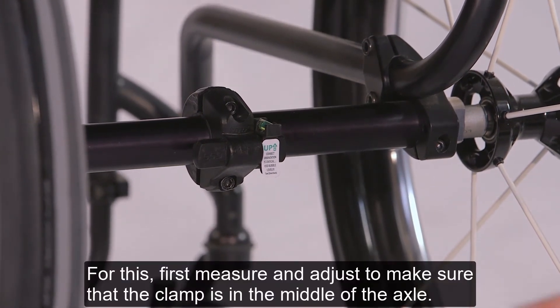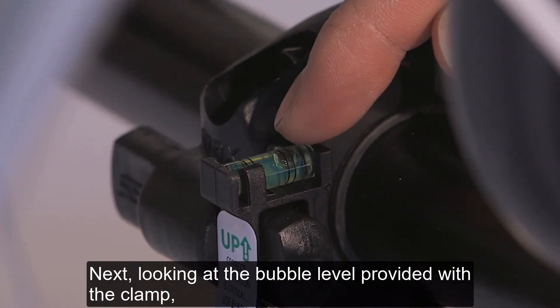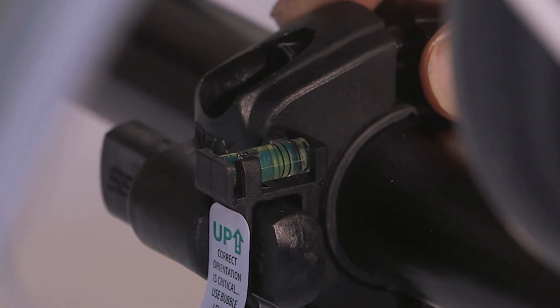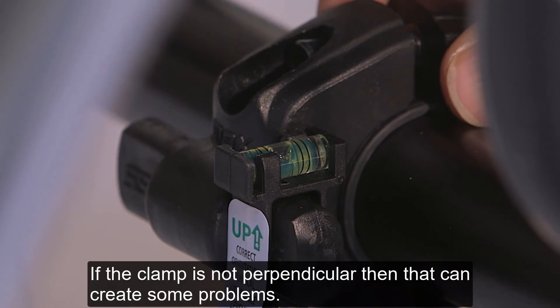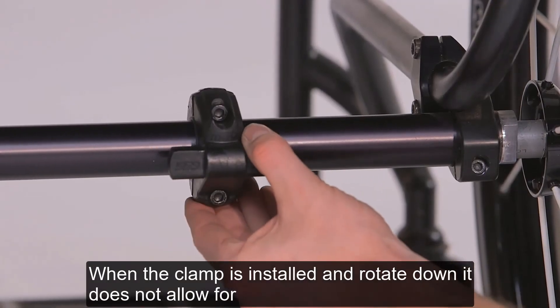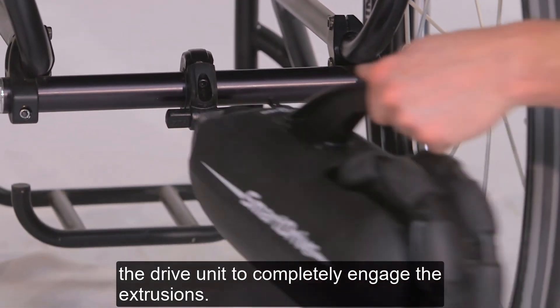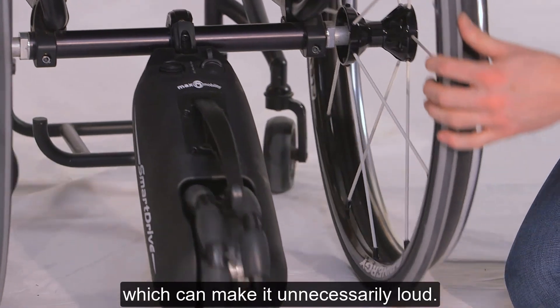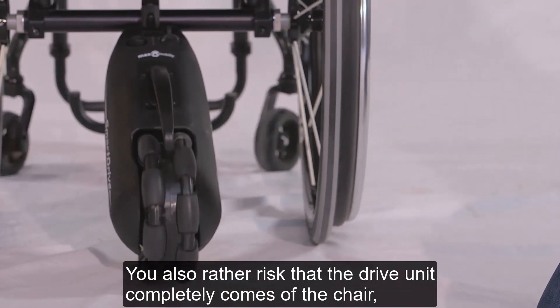First, measure and adjust to make sure the clamp is in the middle of the axle. Next, looking at the bubble level provided with the clamp, orient the clamp so that it is perfectly perpendicular to the ground. If the clamp isn't perpendicular, that can create some problems. When the clamp is installed or rotates down, it doesn't allow for the drive unit to completely engage its extrusions. In this circumstance, you will see the drive unit waddle behind the chair, which can make it unnecessarily loud. You also run the risk of the drive unit coming completely off the chair, which is never good.